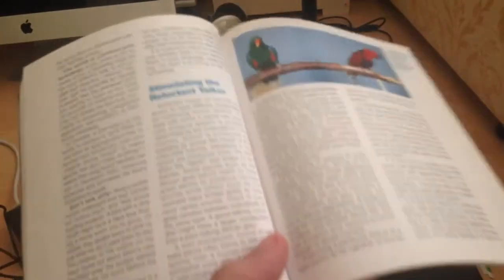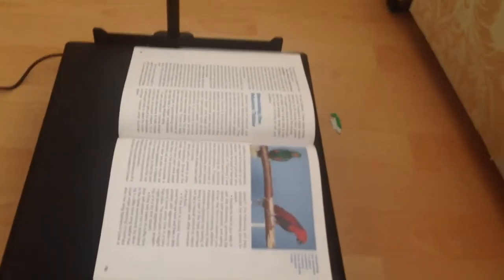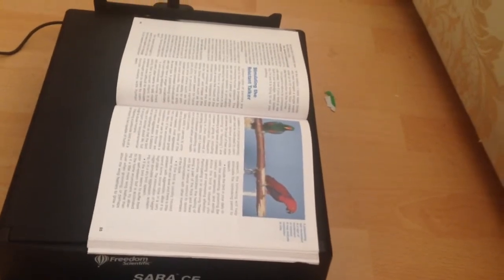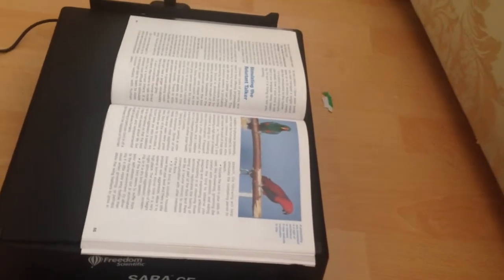Here's a book about parrots. To use this, you take your book and line it up with the back of the unit like so, smooth it down as best you can. It gives you enough time to do that — then move your hand away and wait. It makes a camera shutter noise to indicate it's taking a picture, and it should start reading in a second.